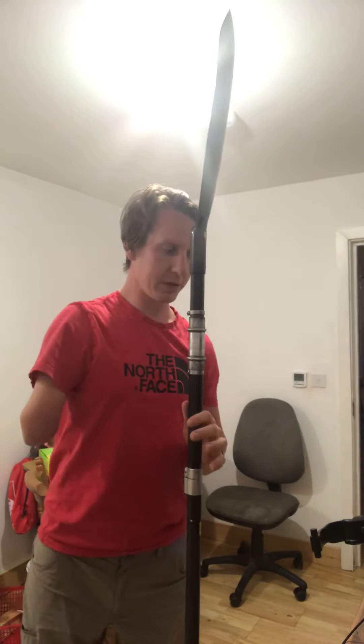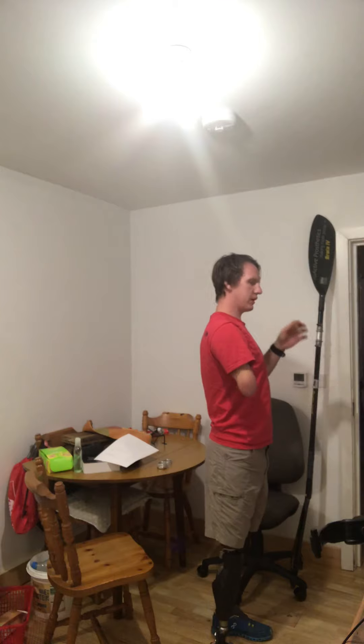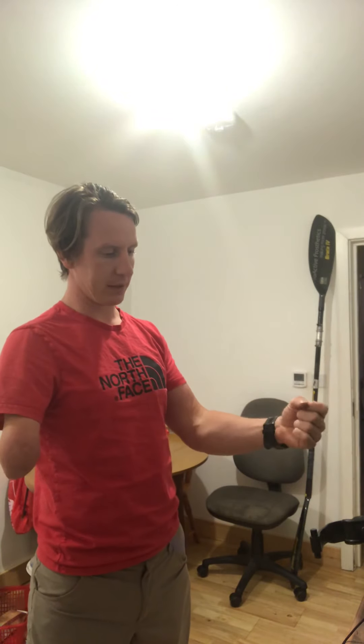Clearly the issue with the elbow is about control of it. I was racking my brains trying to work out how to do this. Could we do it like some of my knees with hydraulics, where you can control extension and flexion differently — almost creating breaking points so it will support and then break, hold, and then extend? But the problem is it would be quite heavy and a lot more complicated to design and manufacture.